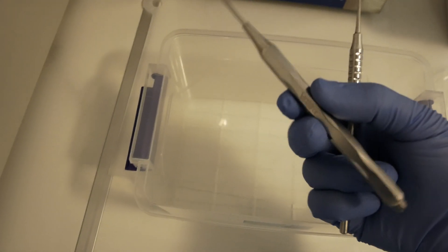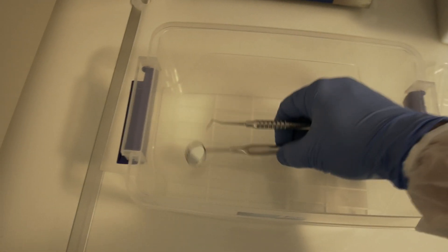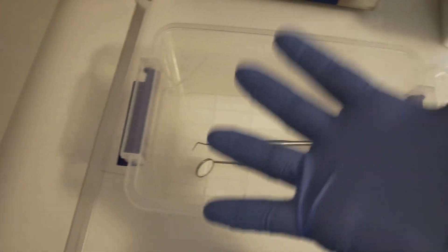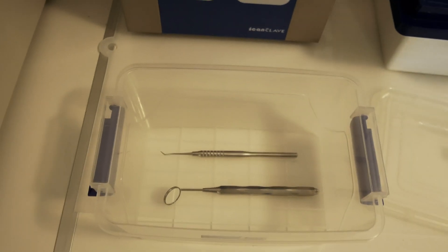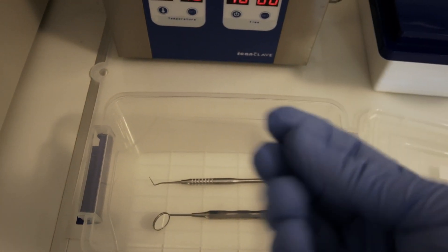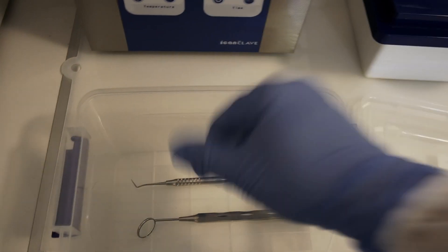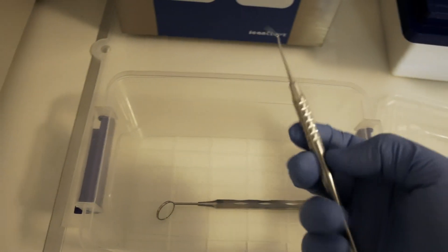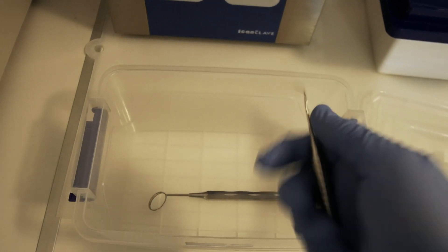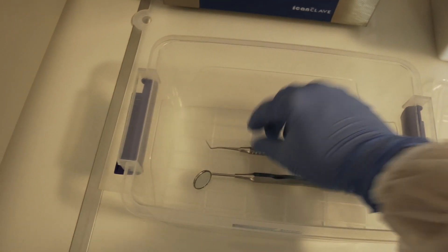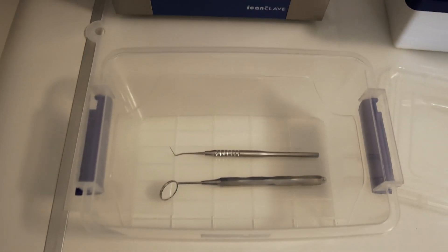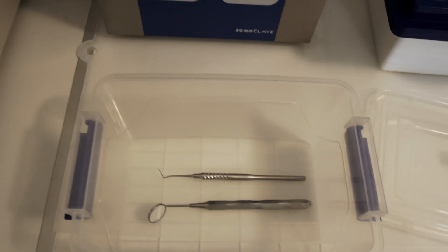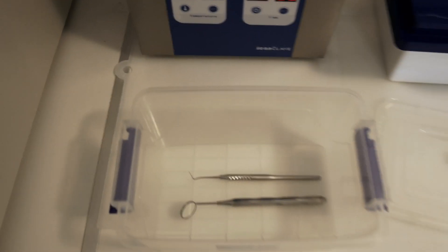So I have my instruments here. Let's say you want to process this explorer and this mirror. I'm using normal gloves as it's easier for me to handle the camera. You should be using thicker gloves in order to prevent puncturing the gloves and maybe risk infecting yourself.